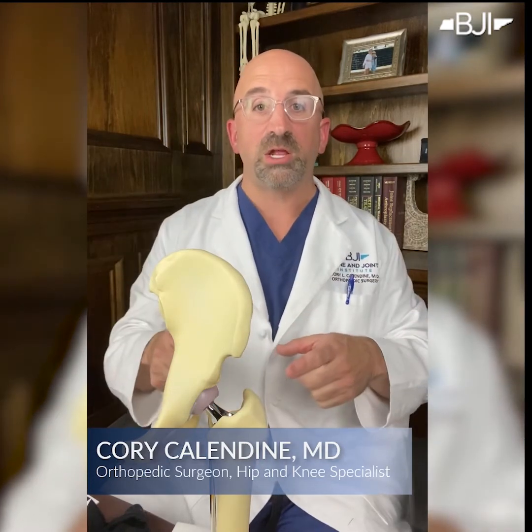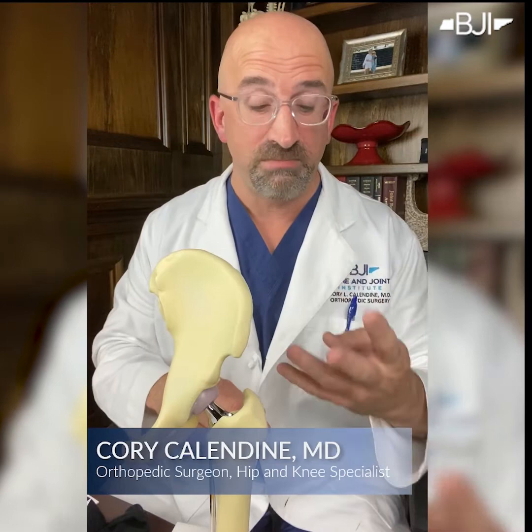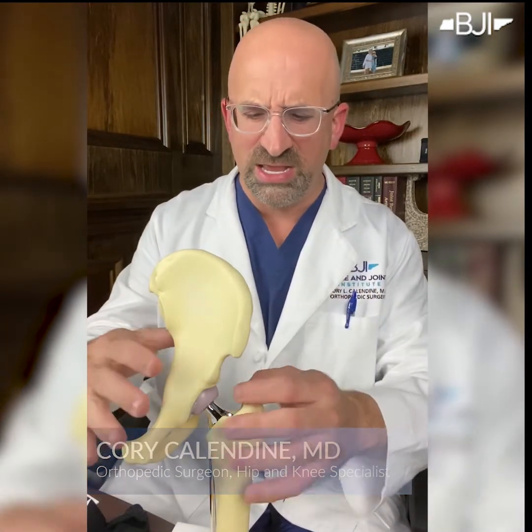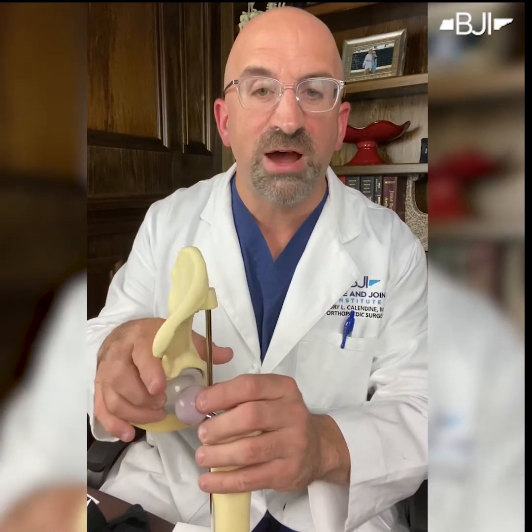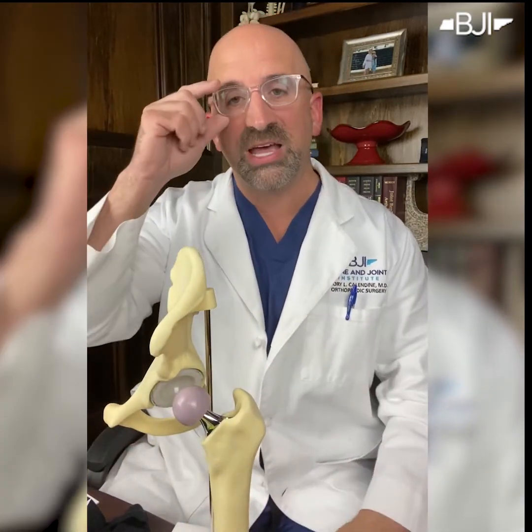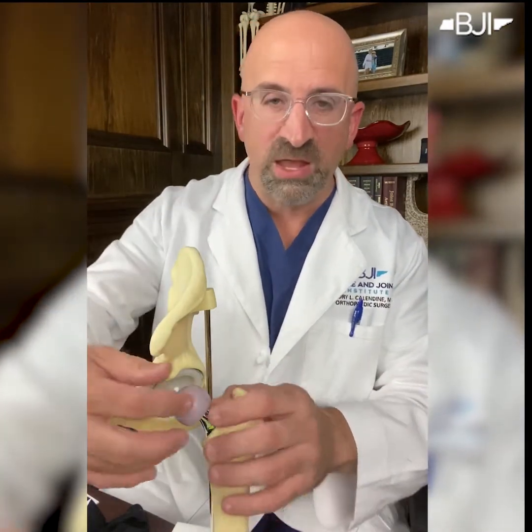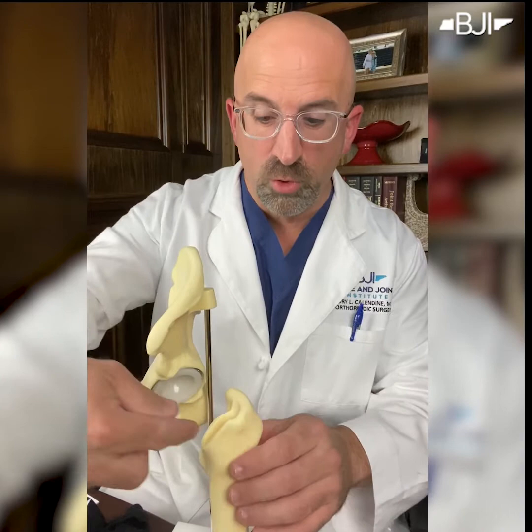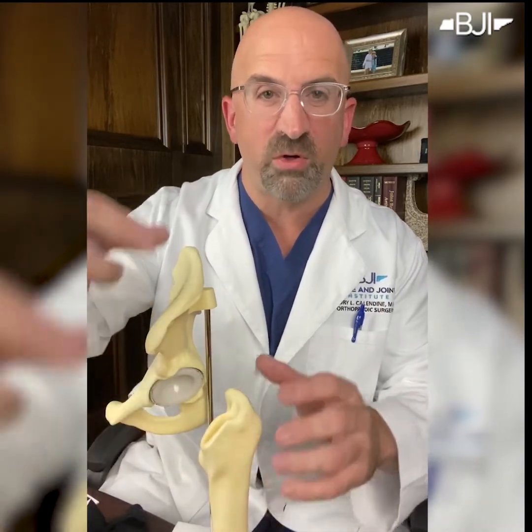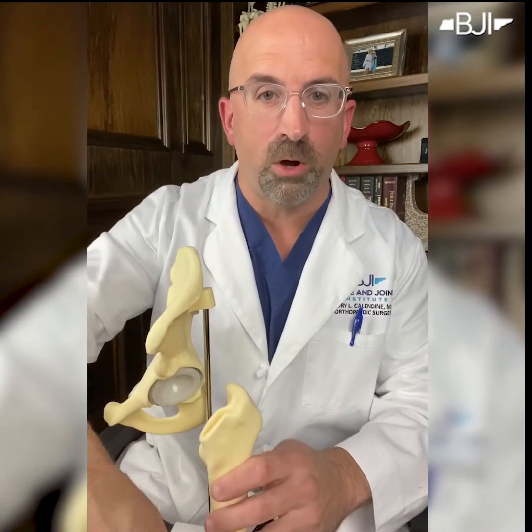So I brought this model along to talk about it. There are four parts to a hip replacement: two are metal, and then you have a head ball and a plastic liner. Let's talk first about rebuilding the femoral side, the thigh bone side. This represents the top of the thigh bone, the top of the femur. And what we do in hip replacement is remove the damaged head ball — that's the head ball where the cartilage is gone and it's bone on bone.